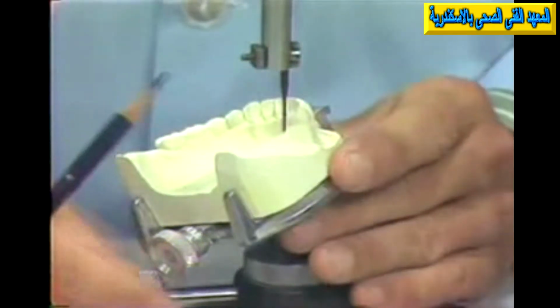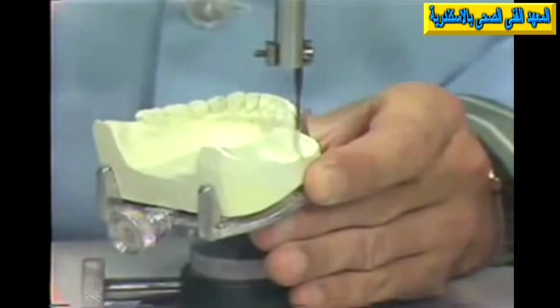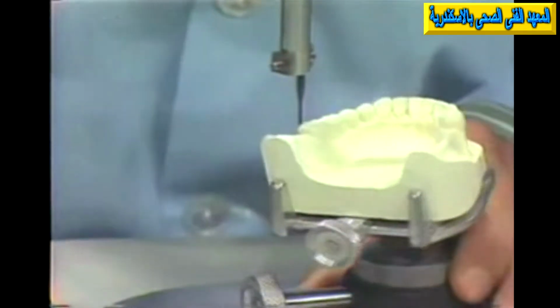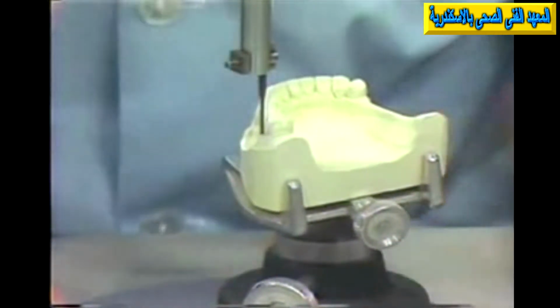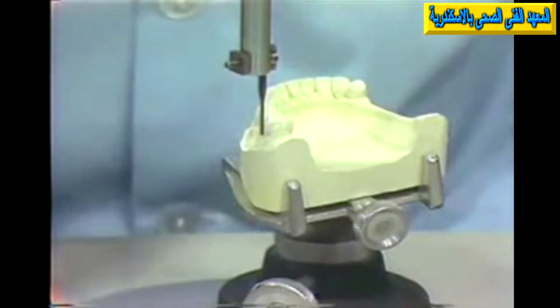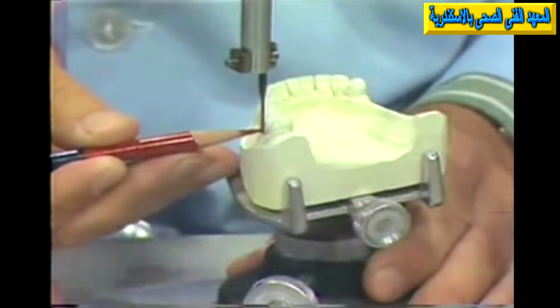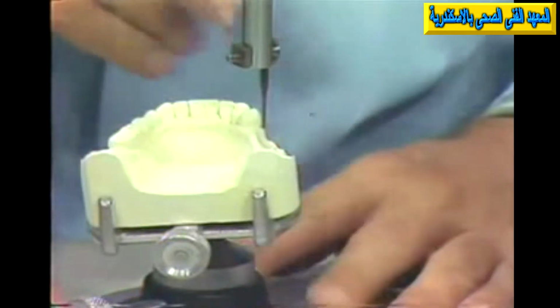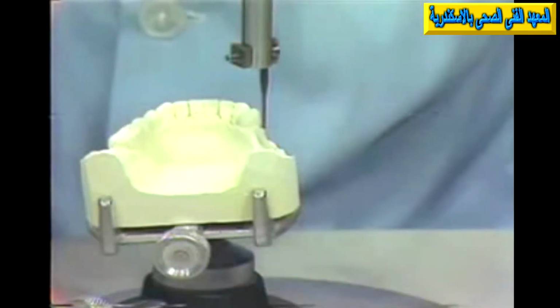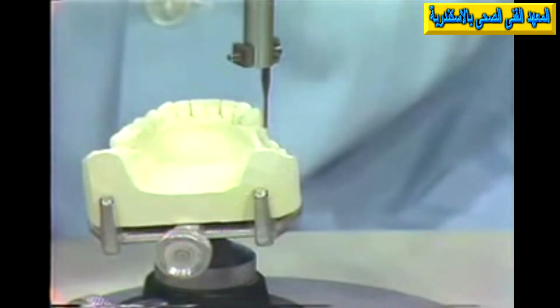Now, when we choose the best path of insertion, we analyze the possibilities of retention, which is in the proper place on the buccal surface on this side and on the buccal surface of the molar in the other side. So this area here on the molar should be checked for retention. Now, in choosing the angle at which we're going to seat this, our decision must be a compromise between the fact that we have to have balanced retention and preferably relatively low in the cervical 1/3 on this one. At the same time, we must have balanced retention, not too little, not too large, on the opposite side. So here, if we had a more straight up and down position of the cast, in terms of one of our considerations, namely that of balanced retention, this particular path looks pretty good.